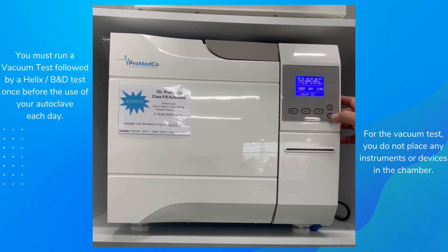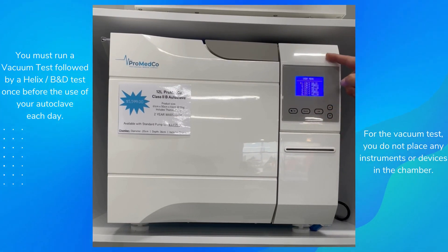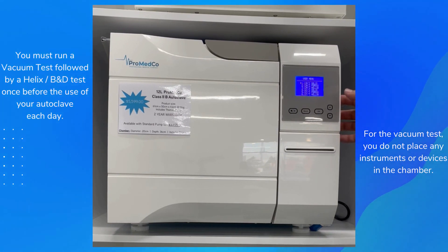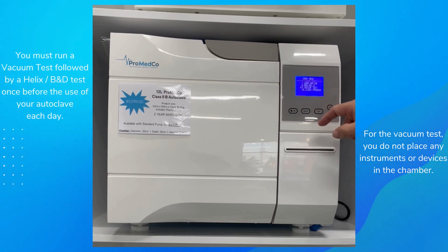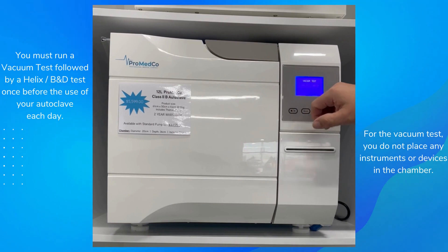What we need to do is go up or down — it doesn't really matter — go to 'User' and press OK. You'll have a series of cycles. This particular machine is a B-class and S-class, which gives us the opportunity to run any of these cycles. We want to go to 'Vacuum'.